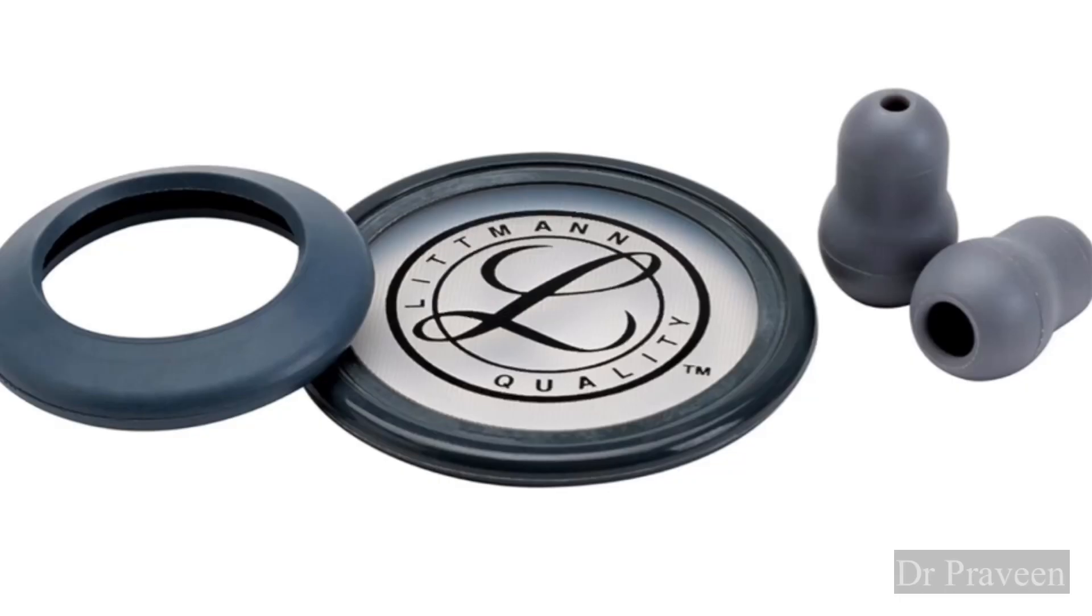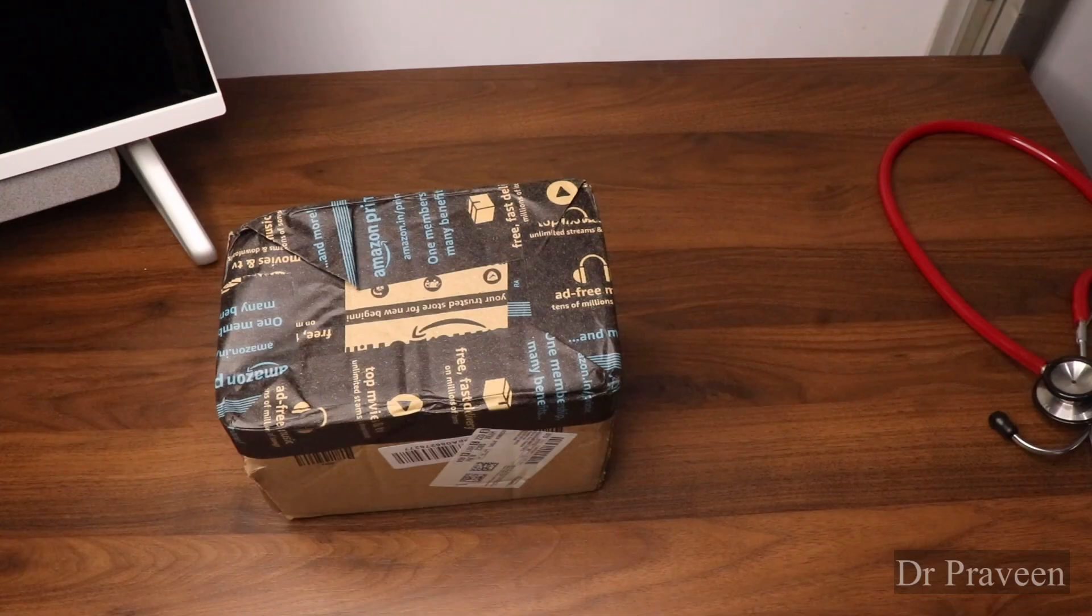Hi everyone, so today I'm going to show you how to replace the diaphragm of the Littmann stethoscope.